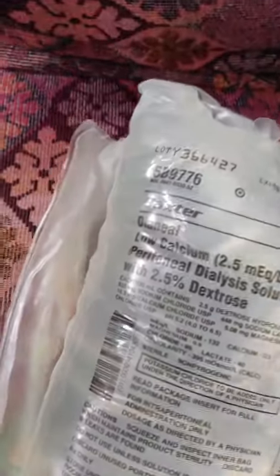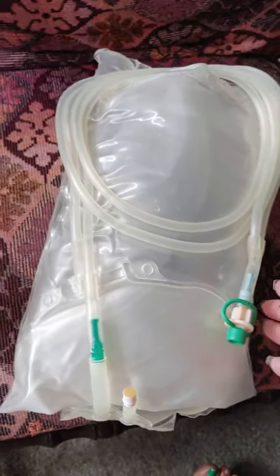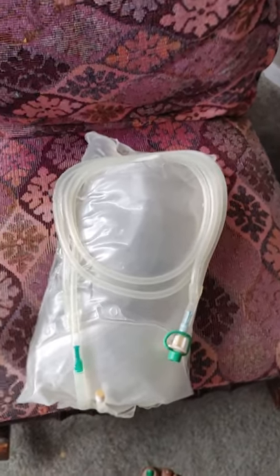When you look at your bags, you always want to make sure. Sometimes condensation happens, so don't freak out thinking your bag is leaking — but always check it. Just give it a nice little once over. You do this six times a day, so you can tell immediately if something's up with your bag. I always check the date to make sure it's not expired, then just kind of look it over. One day I was pulling this up and the whole thing came off, so of course I don't use it — I toss it out and get a new bag. Baxter always ships one extra box of each type in case there's anything wrong, so you're always covered.